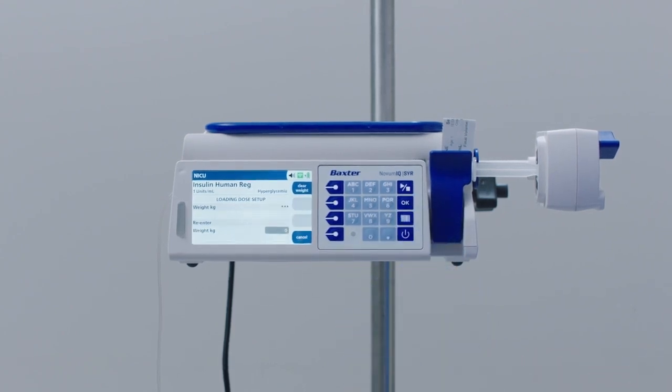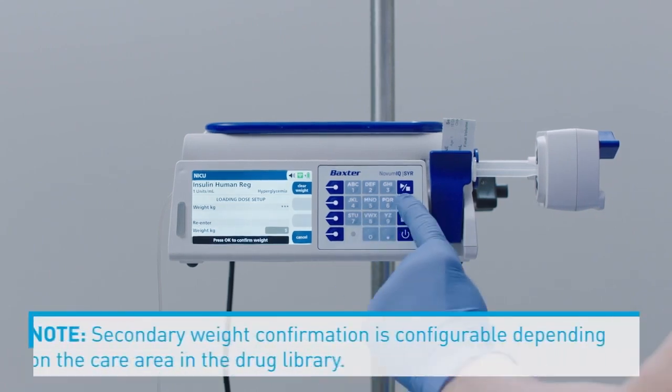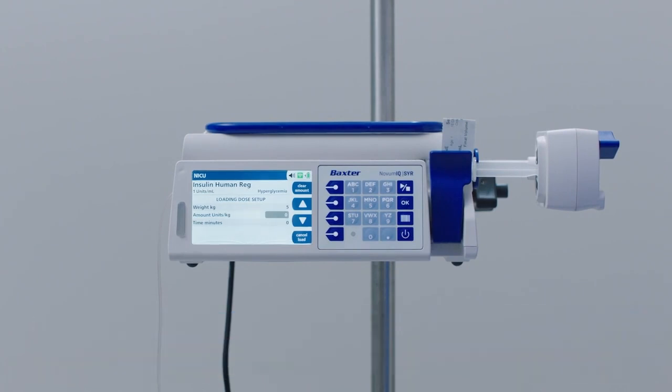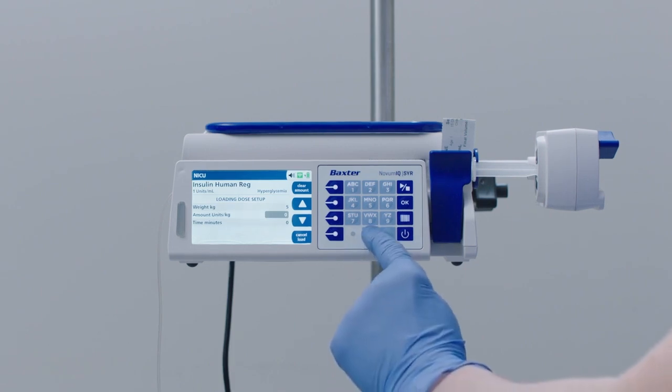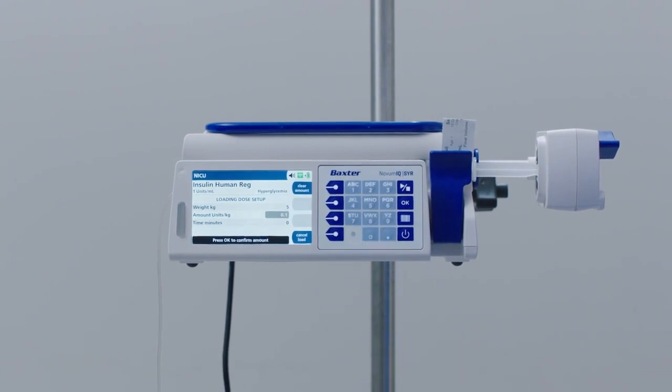Re-enter the patient weight of 5 kilograms. Press OK to confirm. Note: the secondary weight confirmation is configurable depending on the care area in the drug library. The Loading Dose Setup screen appears. Enter the loading dose amount of 0.1 unit per kilogram. Press OK.